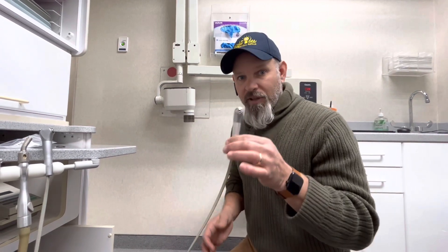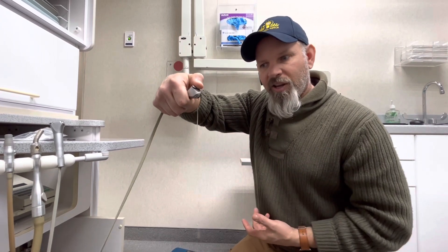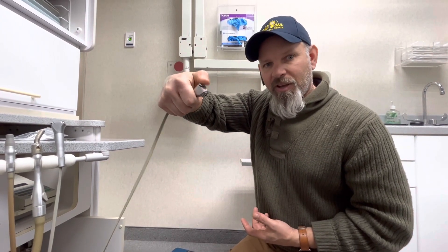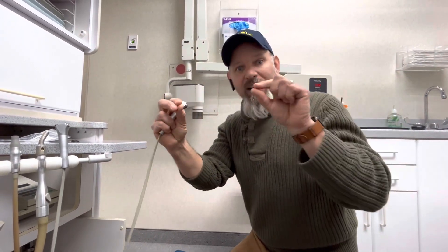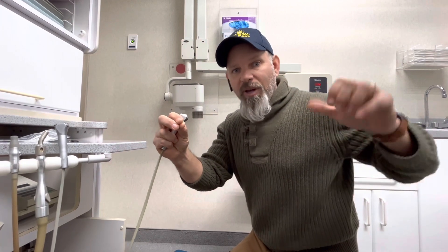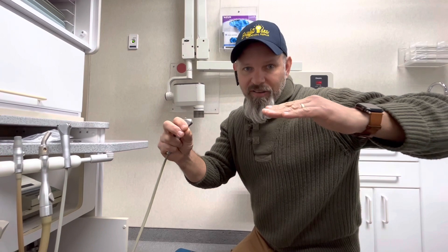The issue manifests with the air water syringe. When you go to press the button, what happens is we get an initial spurt and then it completely stops. This is what happens when you have a clog in your system — you have high pressure that equalizes across a clog, and when you push the button or run your system, the water pressure decreases on the side of the clog and then it drips.